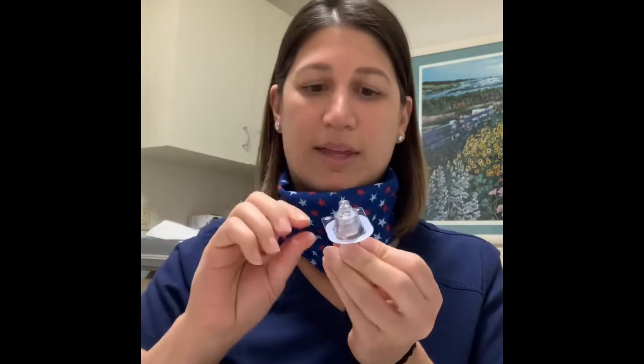When you go to do this, you want to have clean hands and a clean area. The first thing you're going to do is start with the fluid vial — you're gonna flip that cap right off, take the Q-cap, peel it off, then take the vial and the Q-cap and just push them right together. It's like a little hat. Once you have that on, make sure the Q-cap is on good.